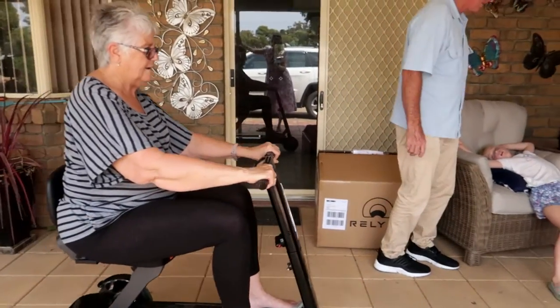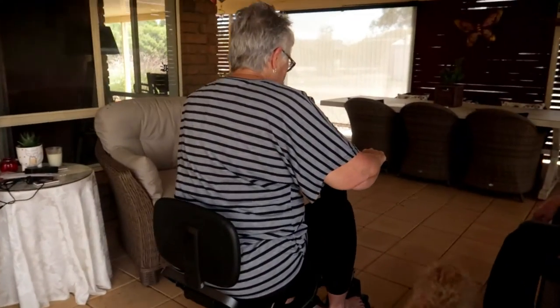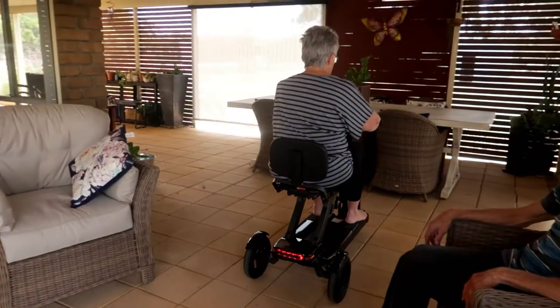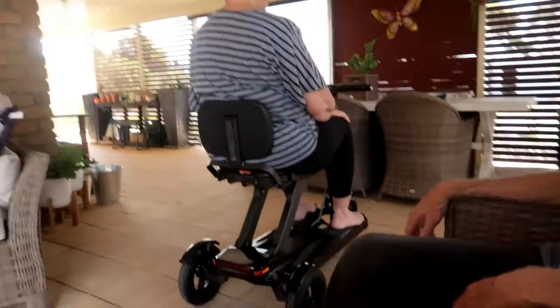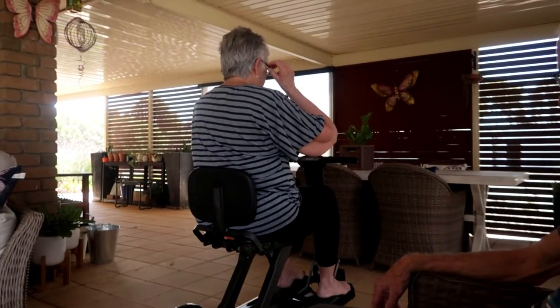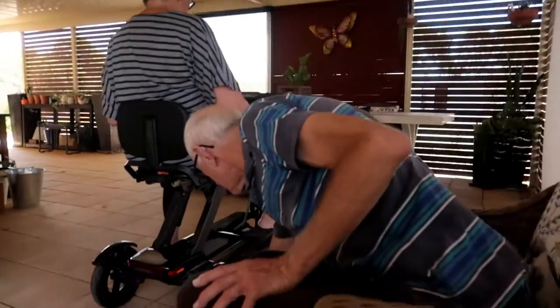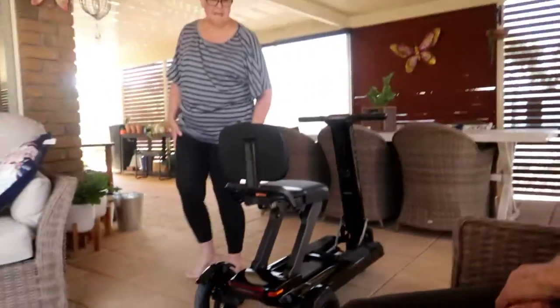Oh, Nana's turn! It's not going to change — it's amazing. It all folds up though, which is very cool. You can take it in your car; it's not limited to one spot like a great big huge thing that you can't take in your car. You've got to check your tire pressure and you can read the manual.